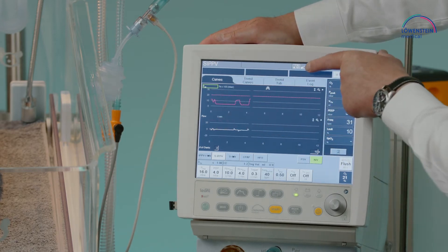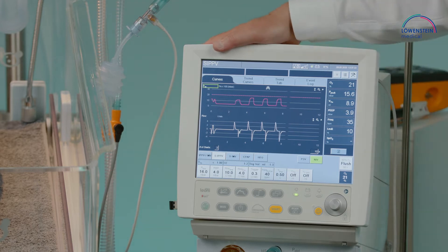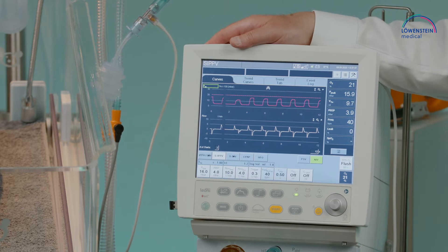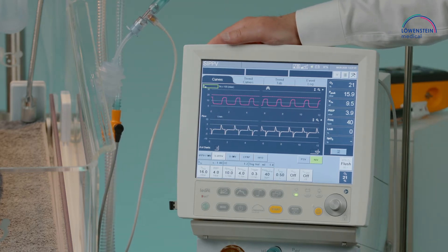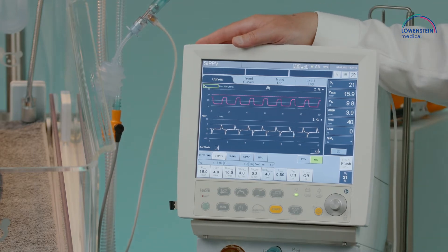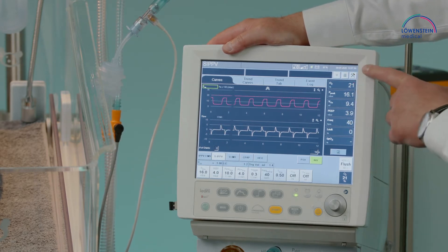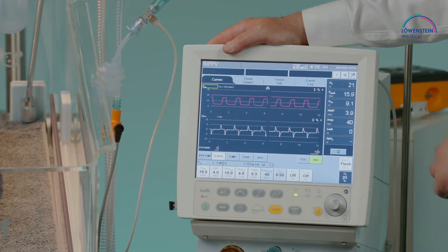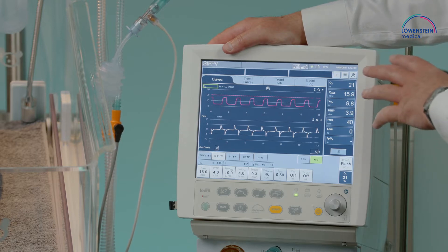We also have alarm figures about the noise level adjustment. There is an indication for power supply connection; the battery symbol is always present, and in case of a loss of power supply, the remaining battery time will be indicated. The actual date is shown, and we have the toolbox with several configuration functions we will come back to.